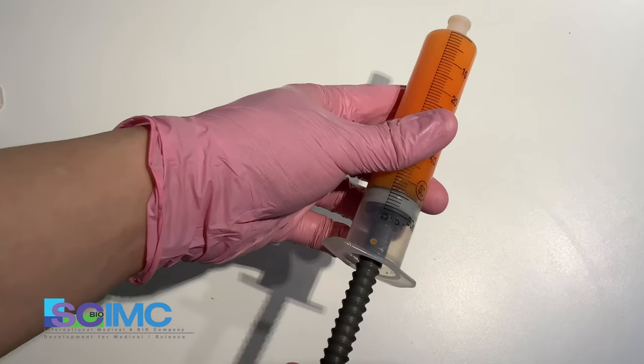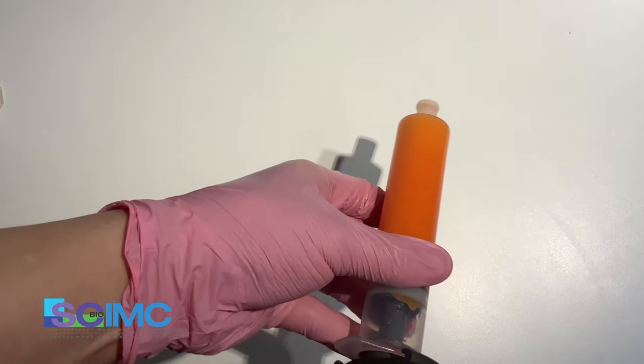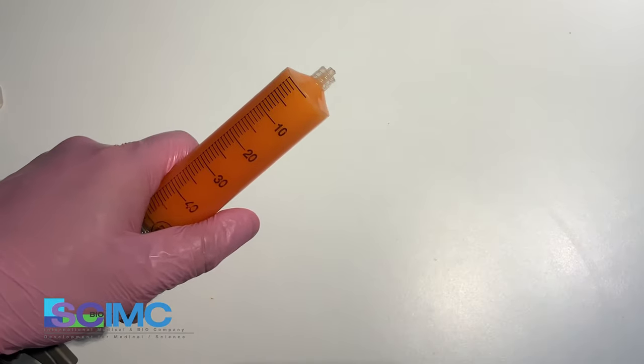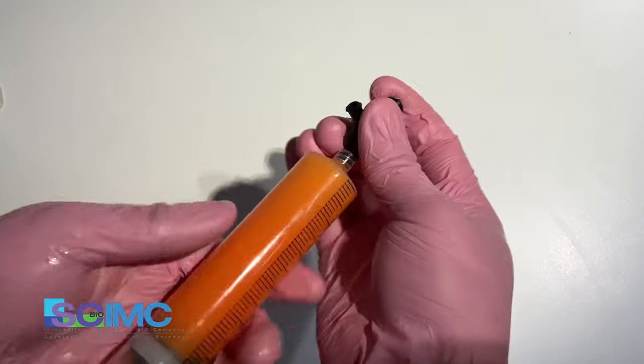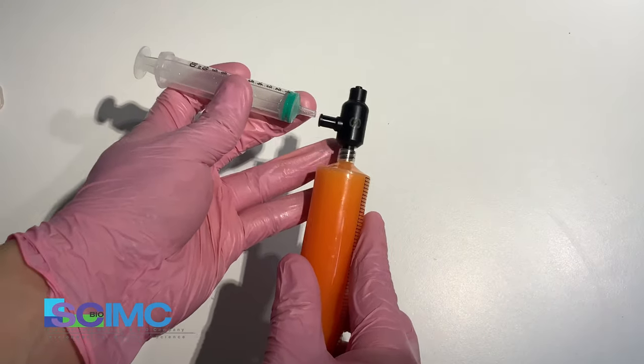And reattach the device. Open the cap and attach the suction adapter. Connect empty syringe.